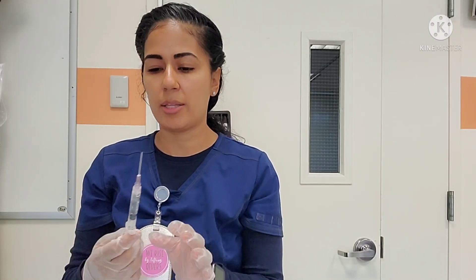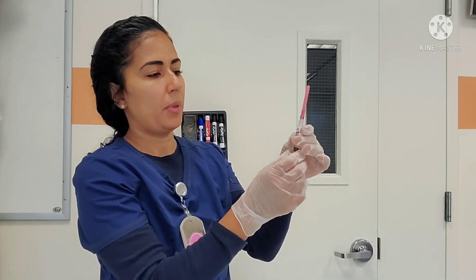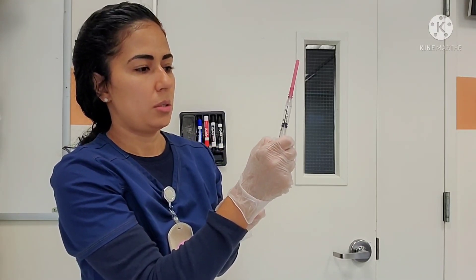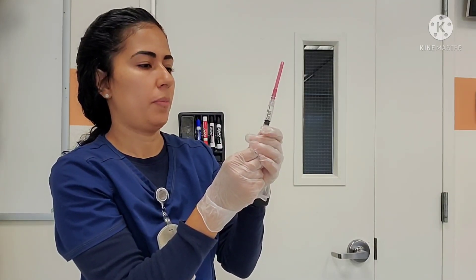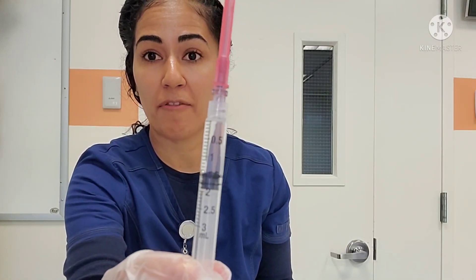Now if I didn't scan the medication yet, I don't want to discard that, so be careful. I'm going to scoop up the cap using the one-hand scoop method. And I'm going to now push the air out of my syringe — going up to 1.5. There you go, I have 1.5 milliliters.